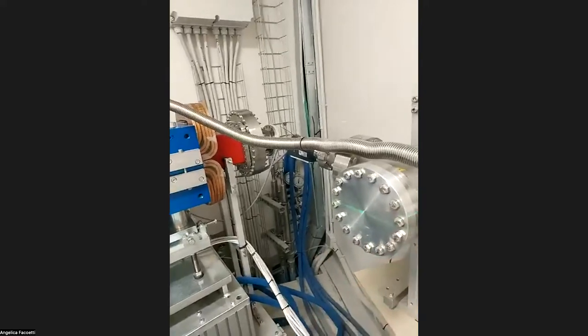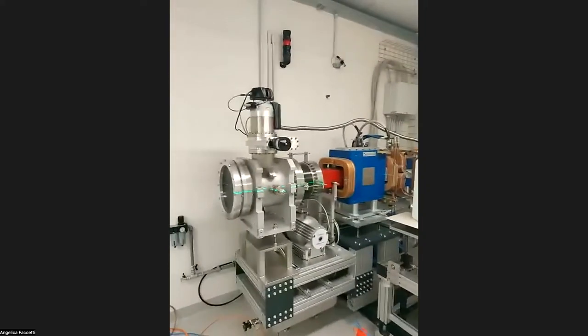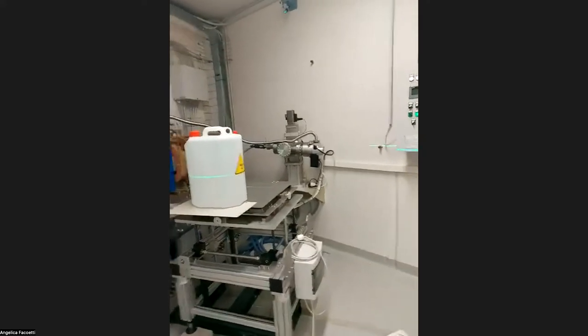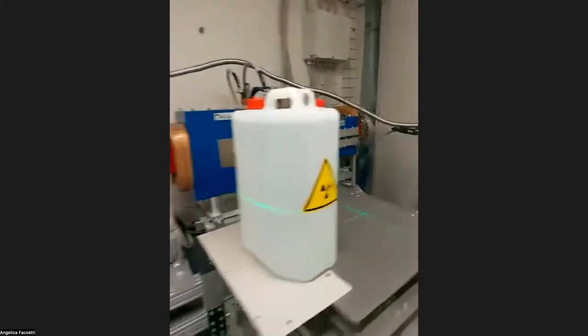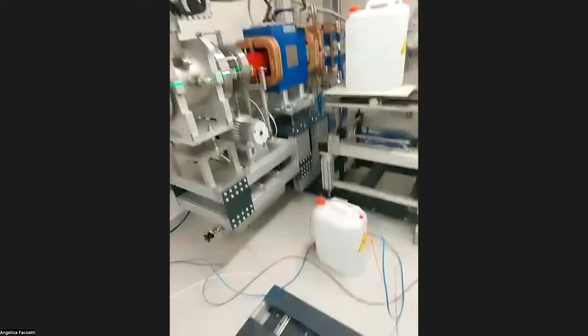The beam comes from here. Behind the wall, there is the synchrotron room. And the scanning magnets are there on the rails, away from the beam line, in such a way that we can make an experiment in isocenter number 1 here. Otherwise, we can move the scanning magnets on the rails.